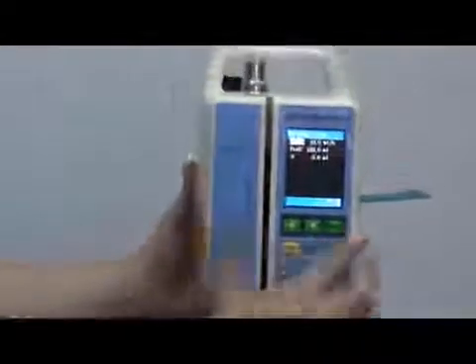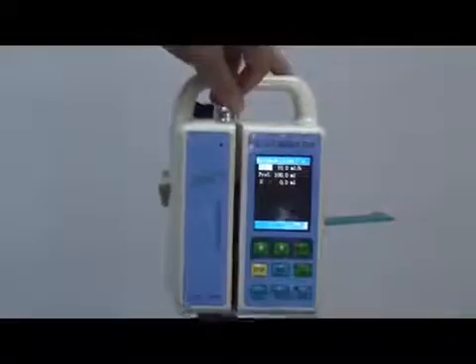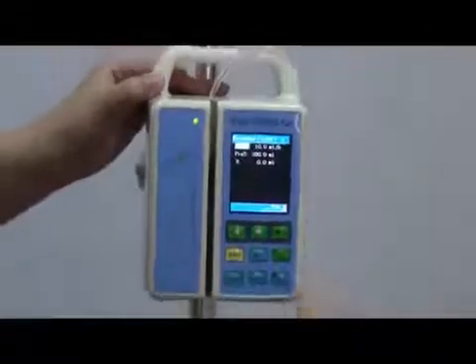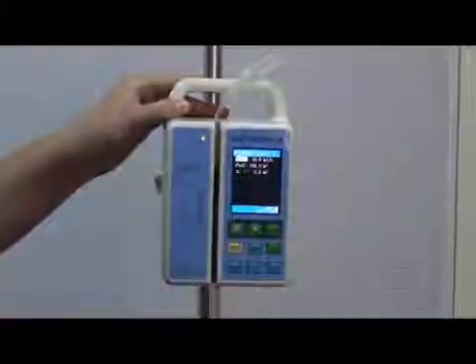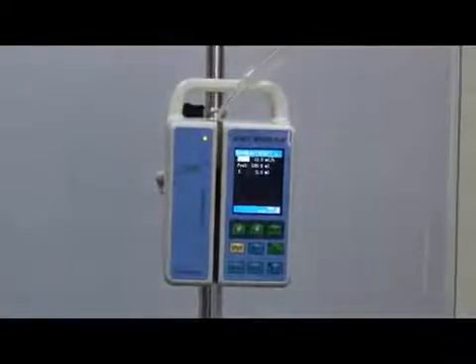Now I will show you how to install the IV set. Firstly, open the door like this. Then pull it straight and fix it — you should fix it like this. Then close the door gently. Now you can see the light is on, meaning this IV set is well fixed. When you close the door, please do not close it this way — this is not good, it may hurt your finger. Just close it like this. The IV set is well fixed.